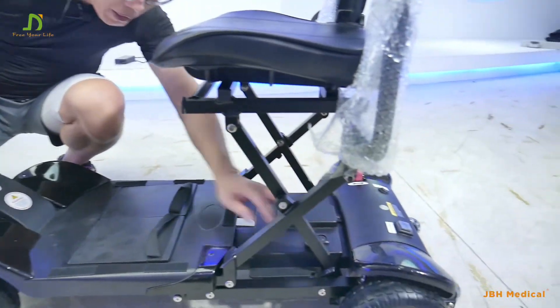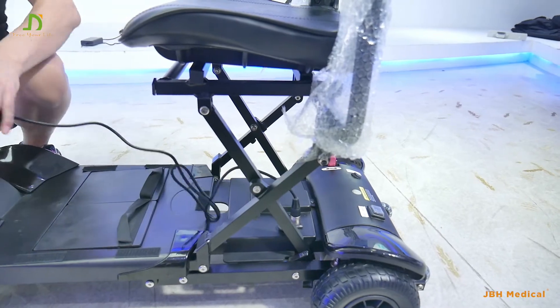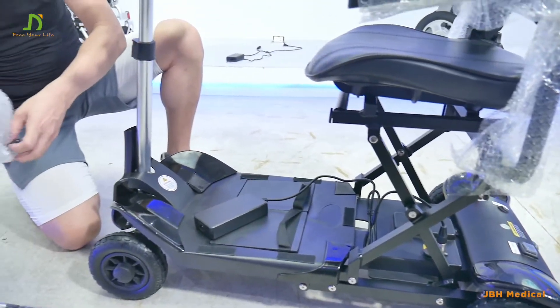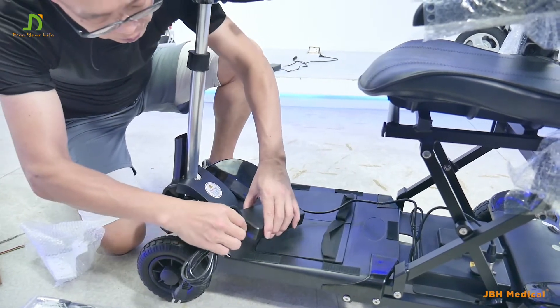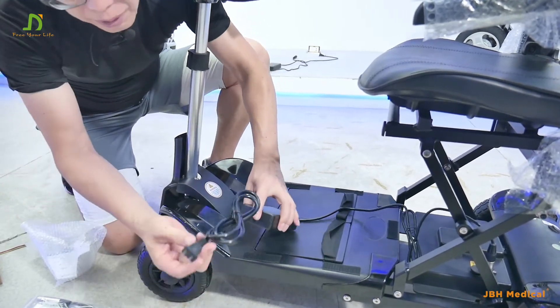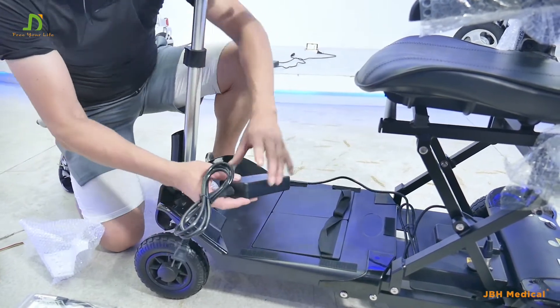Open the cover here and plug this inside. You need to connect the power plug here — insert it here. Then the plug can connect to a power source in your house. That's one way.